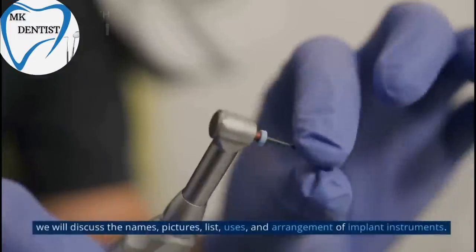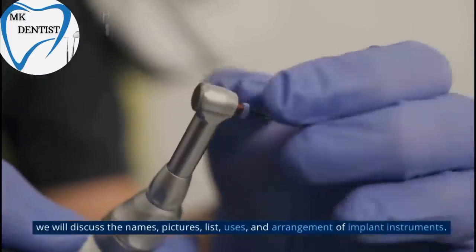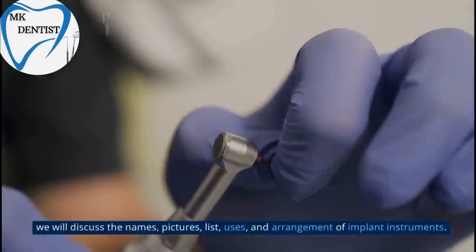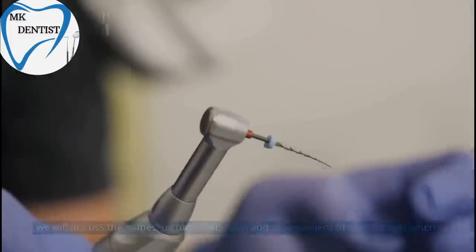We will discuss the names, pictures, list, uses, and arrangement of implant instruments.